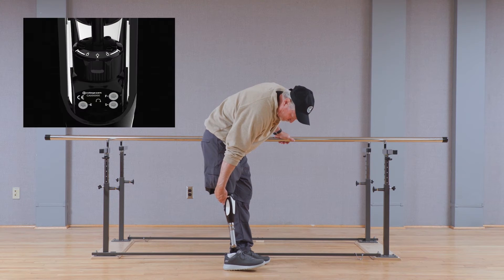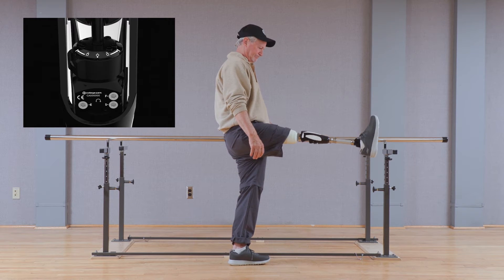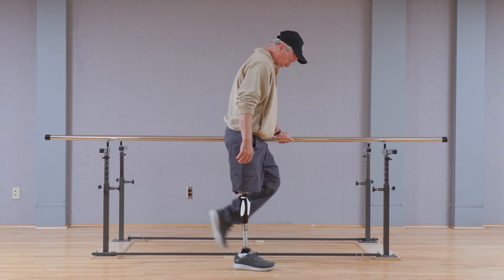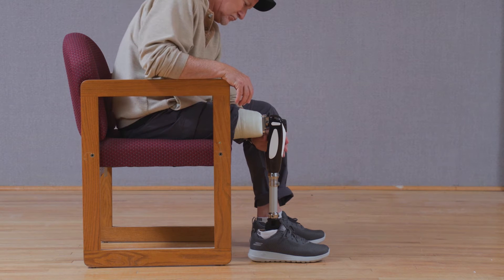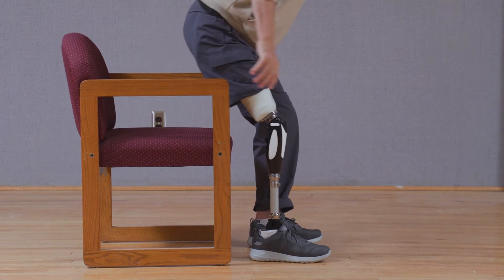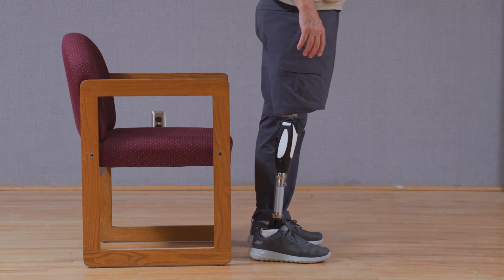Toggling to the left causes the Capital to enter into a very high hydraulic resistance, or locked mode. This high resistance is to flexion only. The Capital can enter into locked mode while in flexion, such as in a seated position, and the knee will freely extend until full extension is reached. If at any point the extension movement is stopped, the Capital will provide high flexion resistance for support.